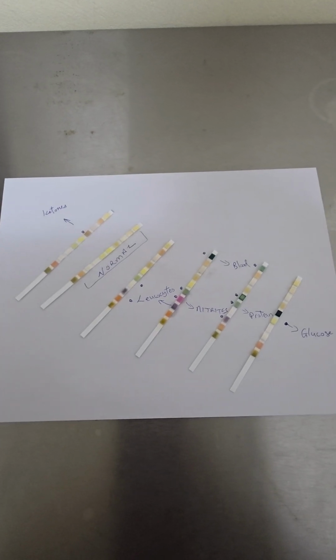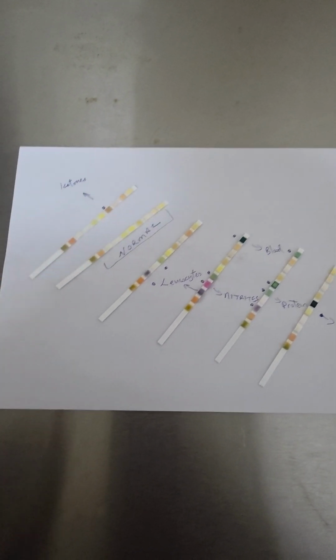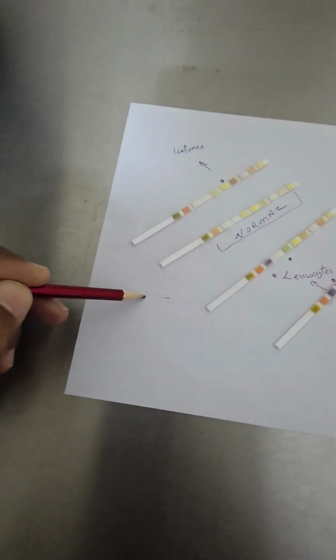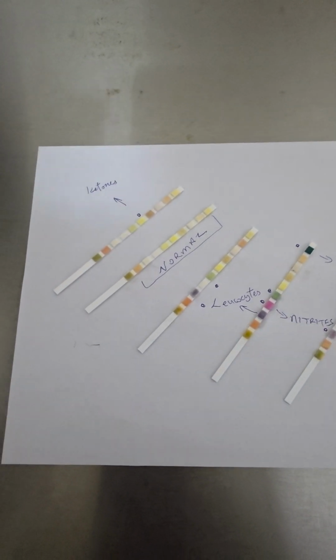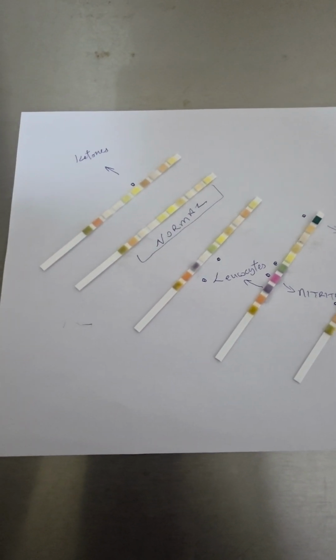Just wanted to share something that I believe is of great importance to all patients, all persons. These here, you would recognize them. These are urinary dipsticks. This first one here is a normal one. You know, all these colors here. This is what happens. There are color changes when the strip is introduced into the urine.